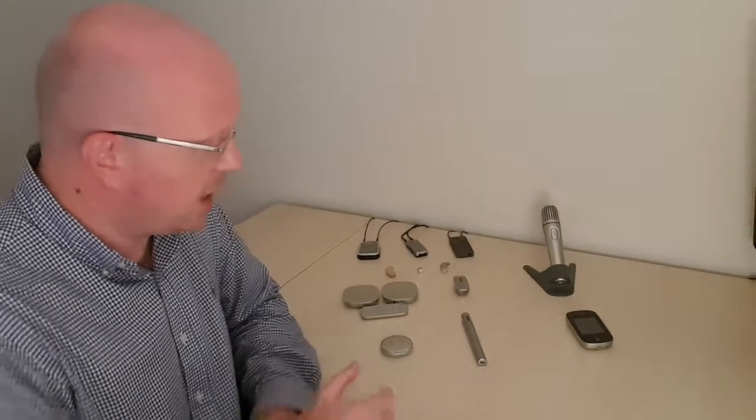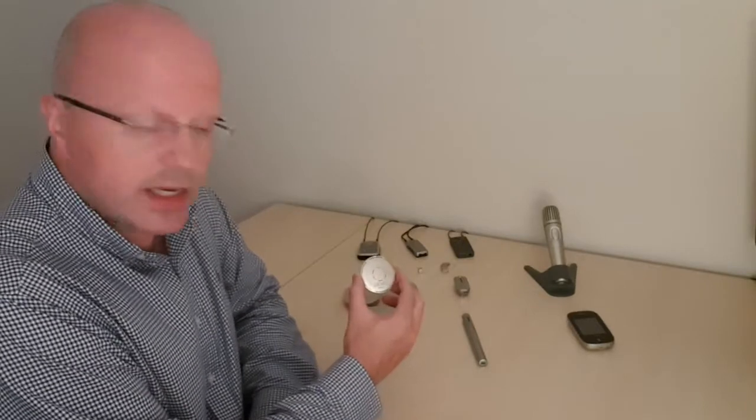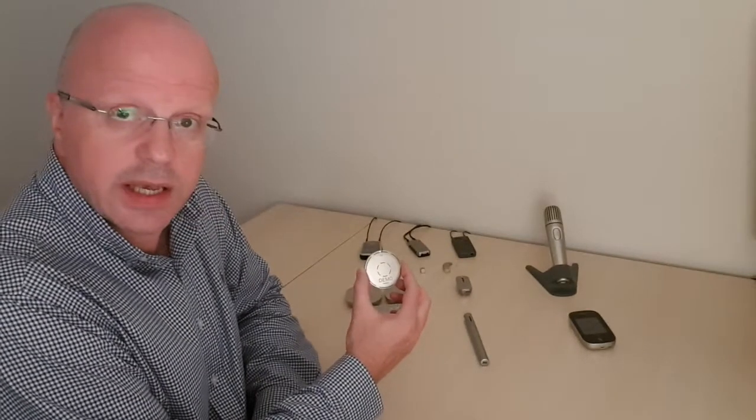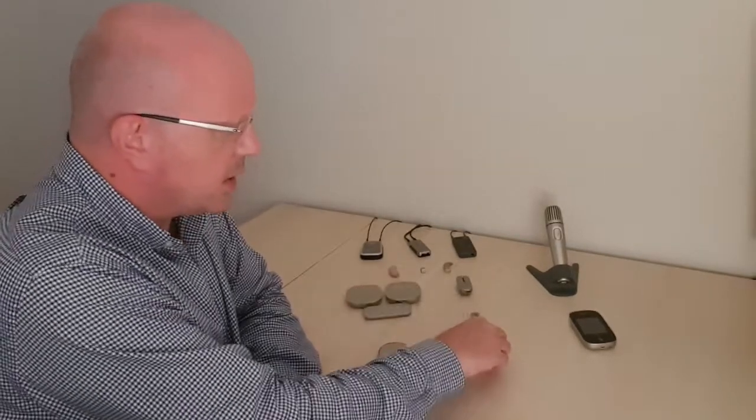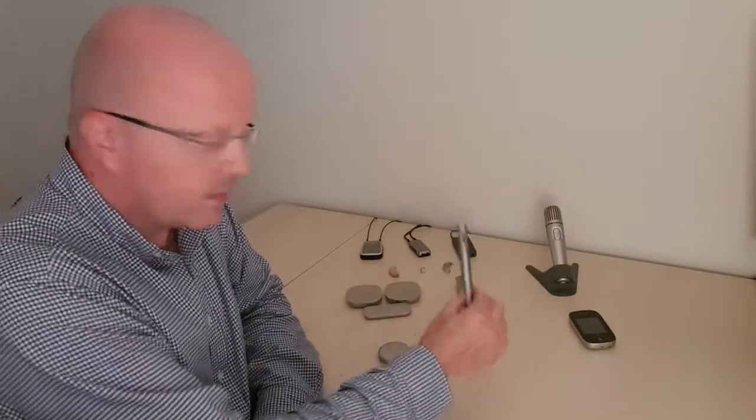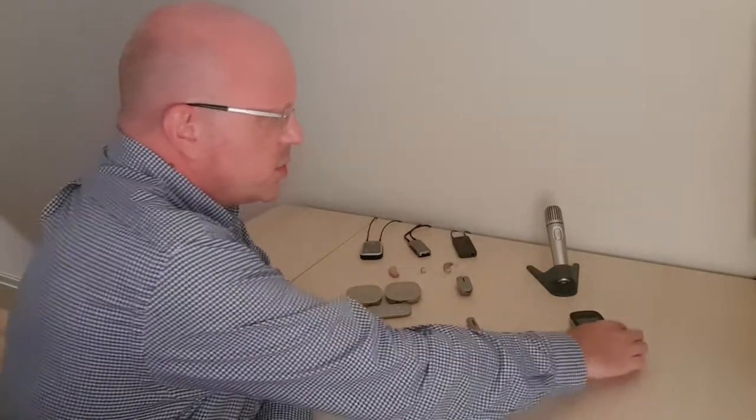Okay, so typically you would have a primary transmitter which would be good for small groups and in noise, and the types of primary transmitters that we tend to supply are the Phonak Roger Select. It's a little round disc here, like so. You've got the Phonak Roger Pen, and you've got a touchscreen mic.